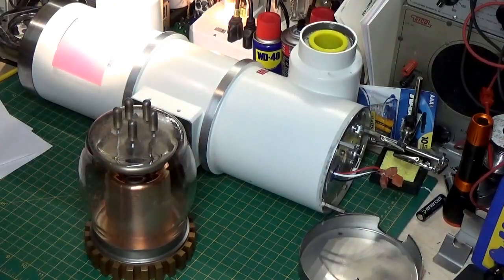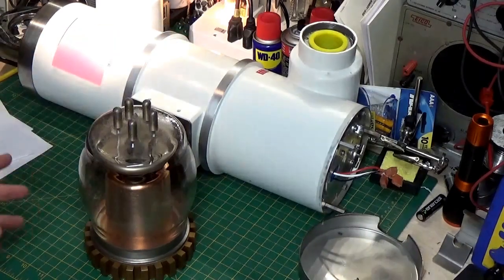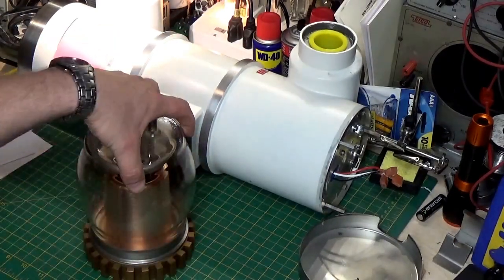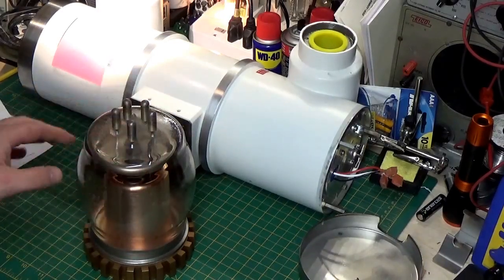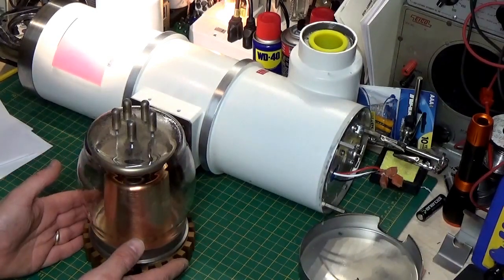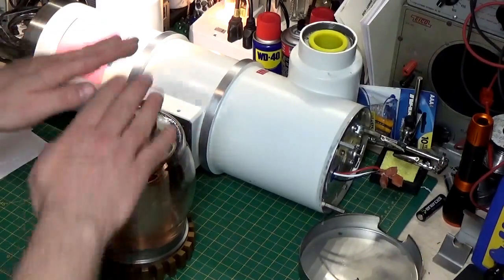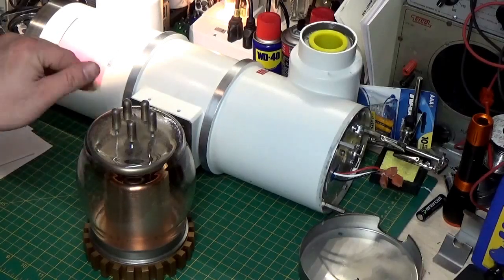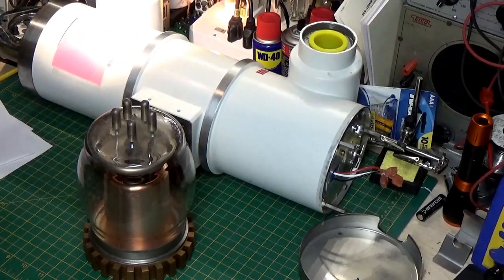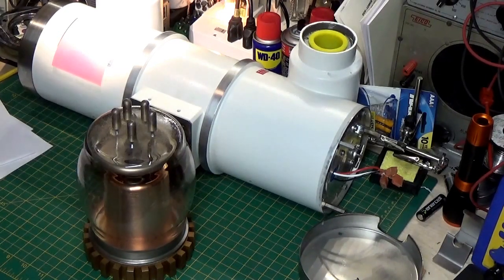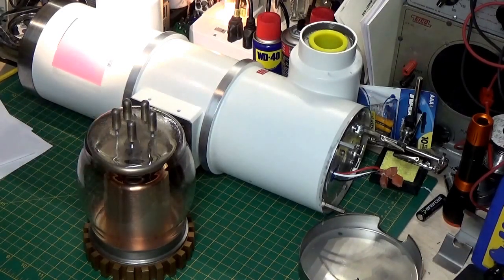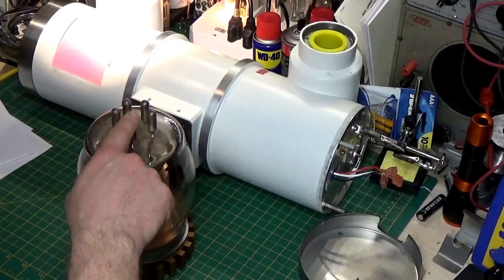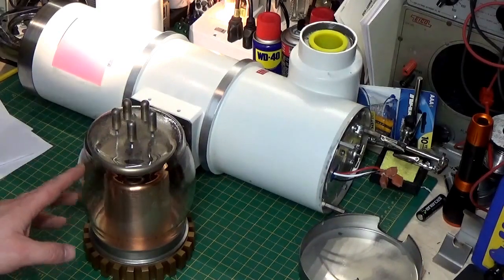So, there's some that you have the grid in the tube and they're good for certain things. And then there's some systems where we just turn the whole signal on and off wholesale. And we have basically our high voltage goes in. You got your cathode end and your anode end. You have your cathode end, anode end. You have your filaments. And you have your grid. And your grid is actually about a 4kV turn on for the grid or turn off, I should say. Negative 4,000 volts. So, even the grid voltage on these things. I know some of you that work on radios, you take your finger and you touch the grid. You know, grid caps and stuff. Don't do that on this one. You only do it once.